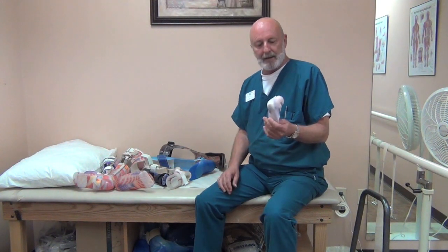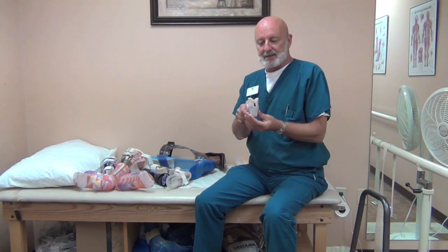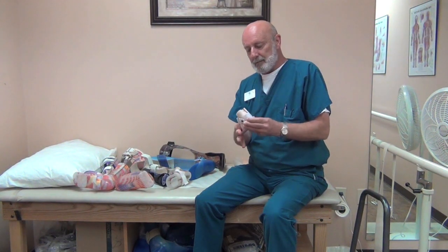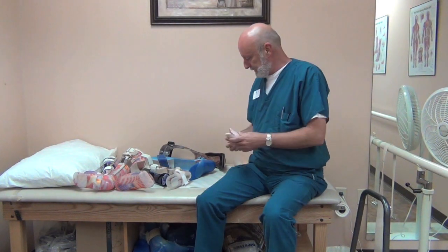If you have a little bit more instability at the ankle and need more support, then an SMO — a supramolleolar orthosis — might be indicated. It goes right above the ankles and does the same thing: designed to provide support for medial-lateral or side-to-side instabilities, support the arch, and protect the integrity of the foot.